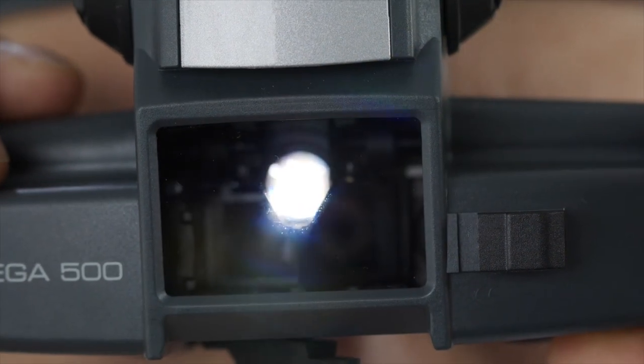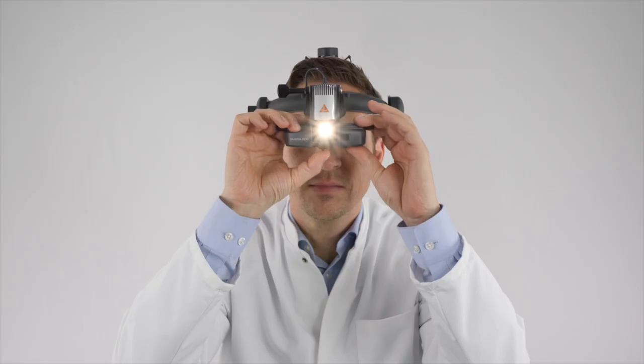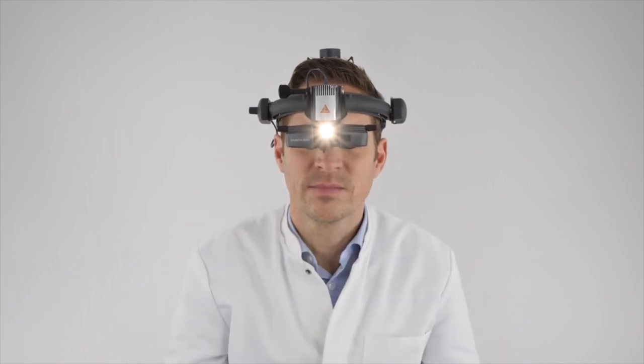In addition, all settings of the illumination beam can be panned by several degrees to achieve better illumination of the fundus periphery.